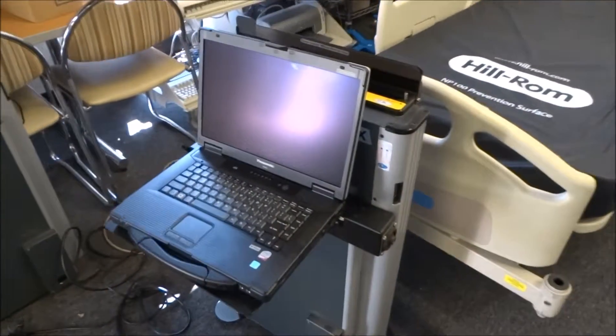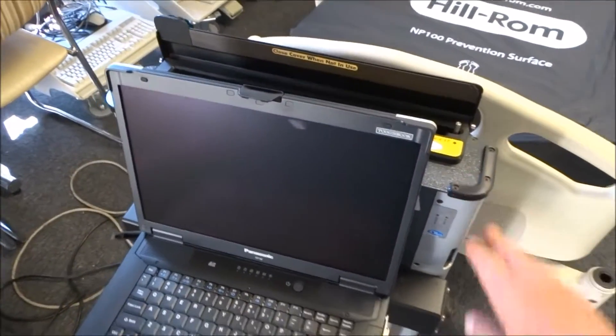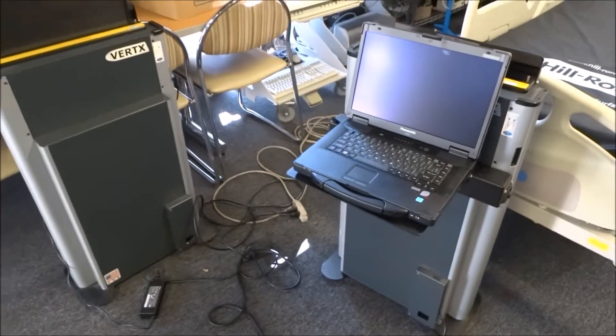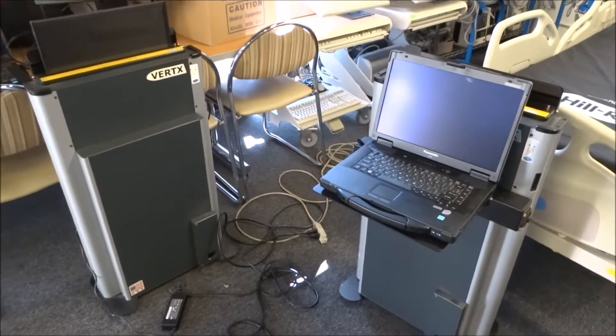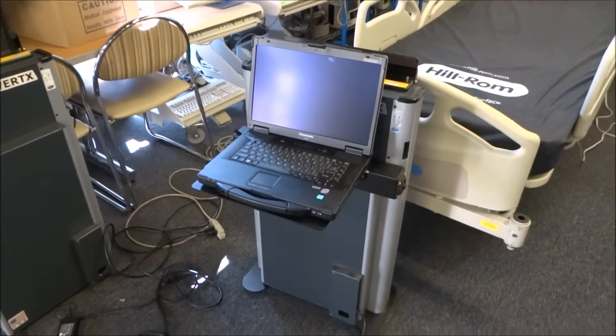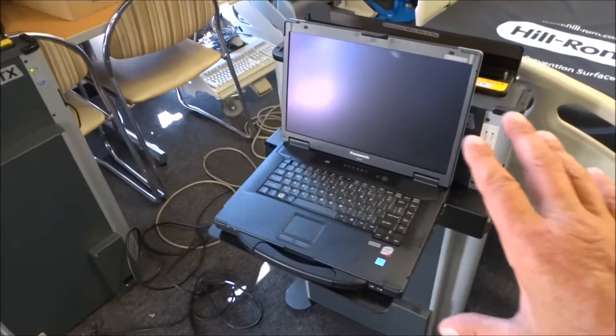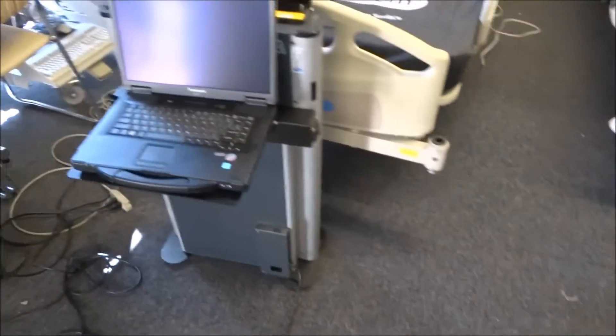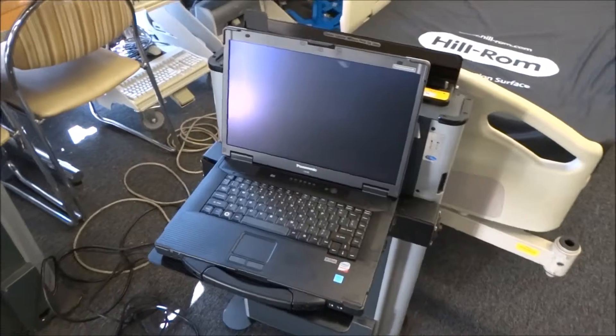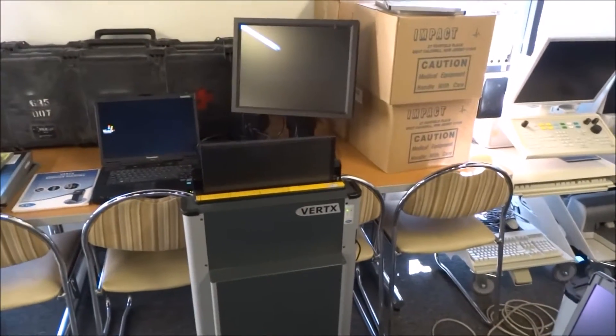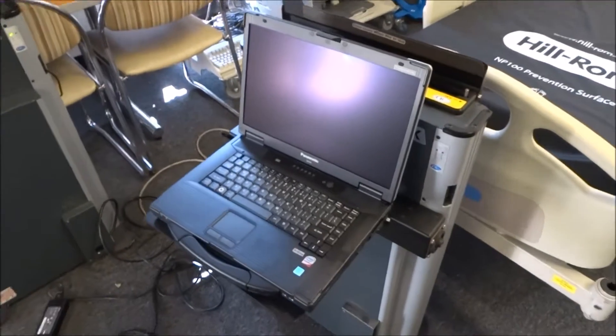This VertRx piece right here weighs about 55 pounds so it's not very heavy. When you're buying the system you're buying the digital processor, you're getting the PC, you're getting cassettes to go with that and if you need it upgraded to say another screen or some other pieces we've got that.